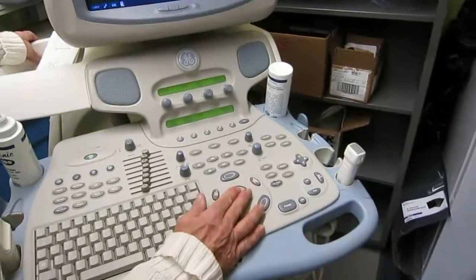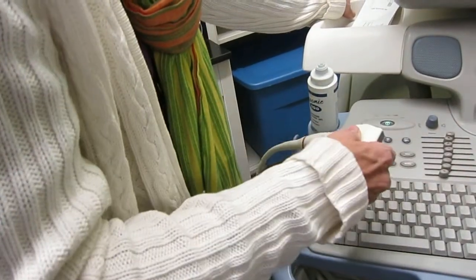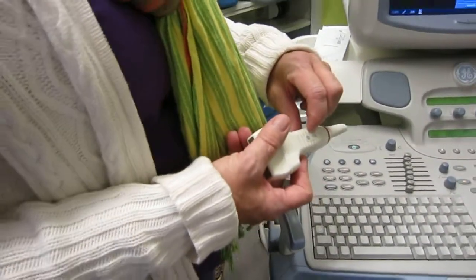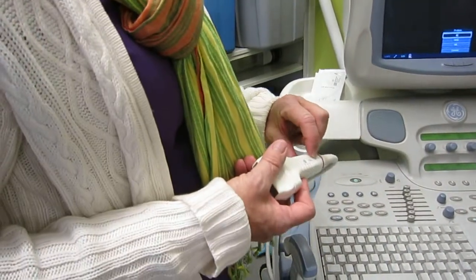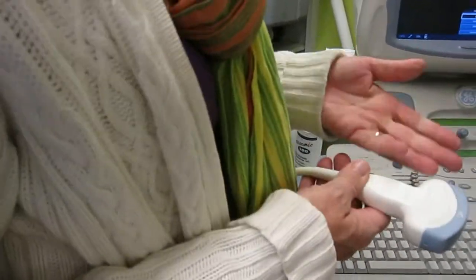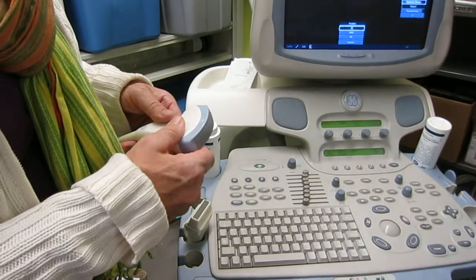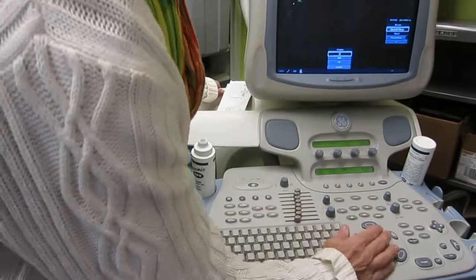So that's the 4MS. So the 4C is this one, and we'll see what the frequencies are. I'm imagining, so the way these are named, it usually does the central frequency of the transducer. So this one will probably have a range of like 12 to 8 or something as far as the frequency goes. And this one at 4 will probably have a frequency, we can check, from 3 to 2 or something like that. Not 3 to 2 because that wouldn't straddle 4. 3 to 5. From 3 to 5, thank you. Okay. See, you're with me here.